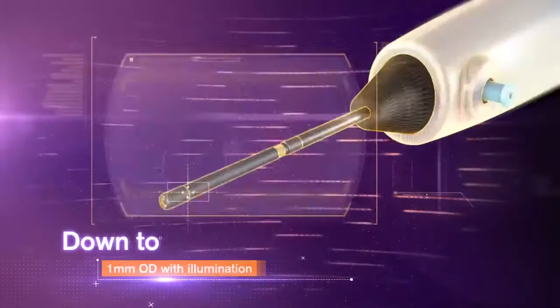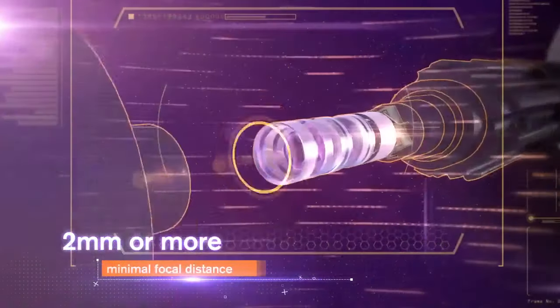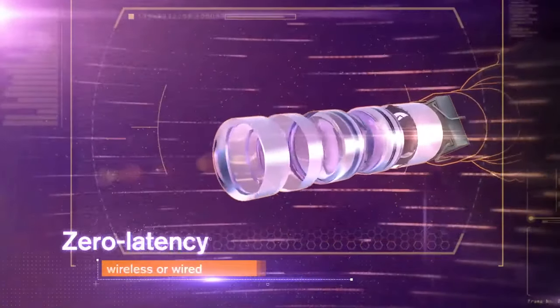ScoutCam solutions meet the most exacting specifications for size, optical parameters, and wireless or wired data transmission.